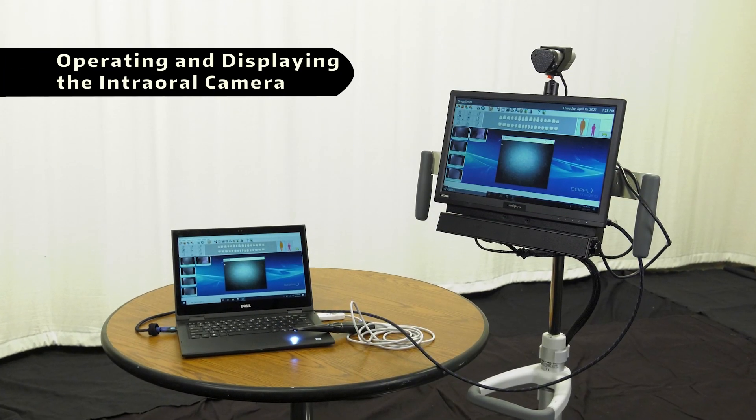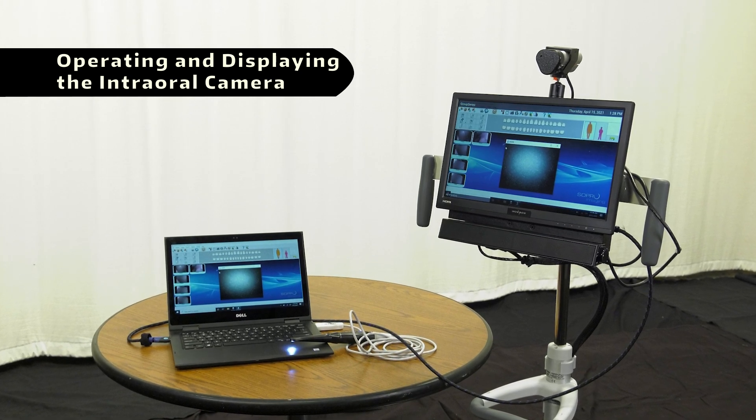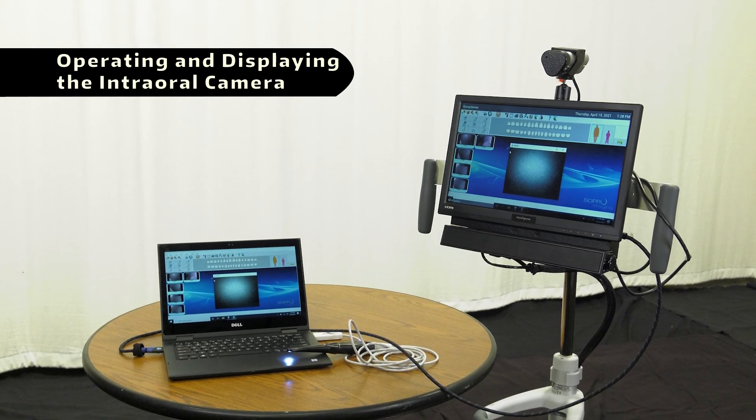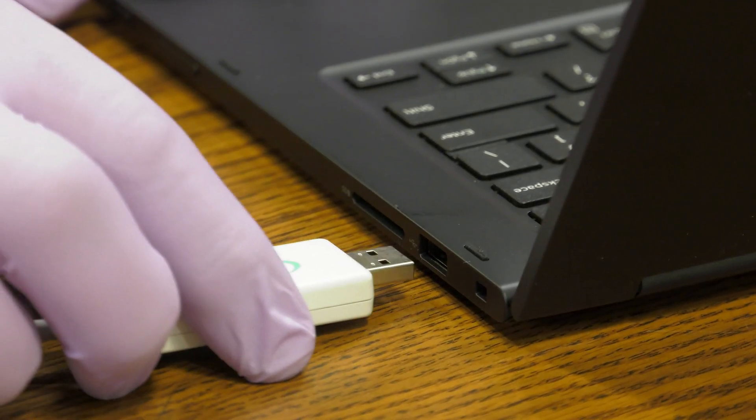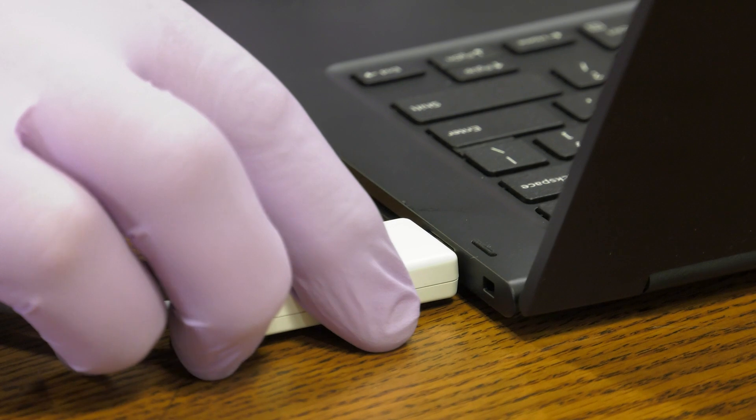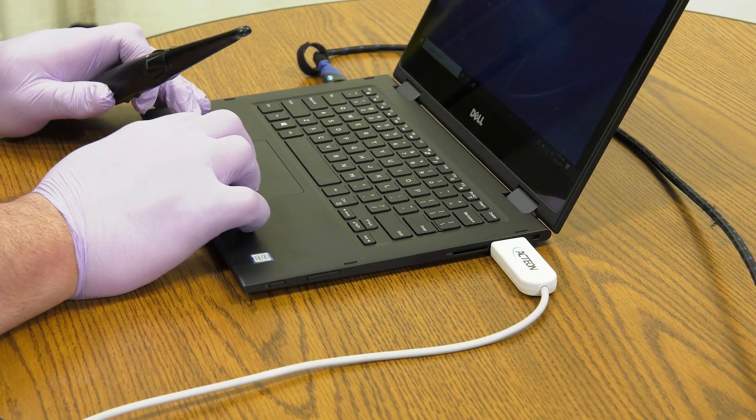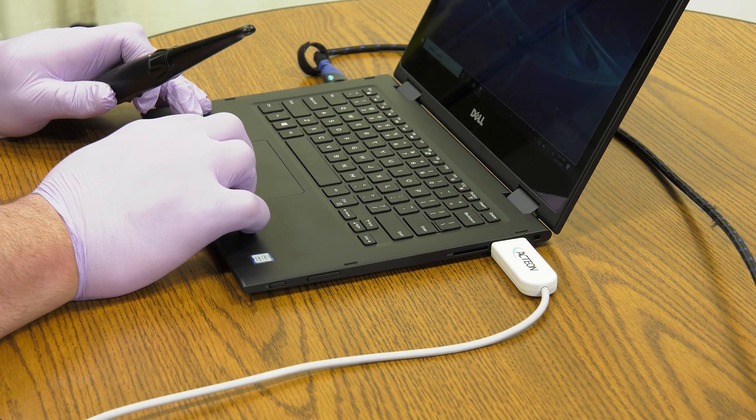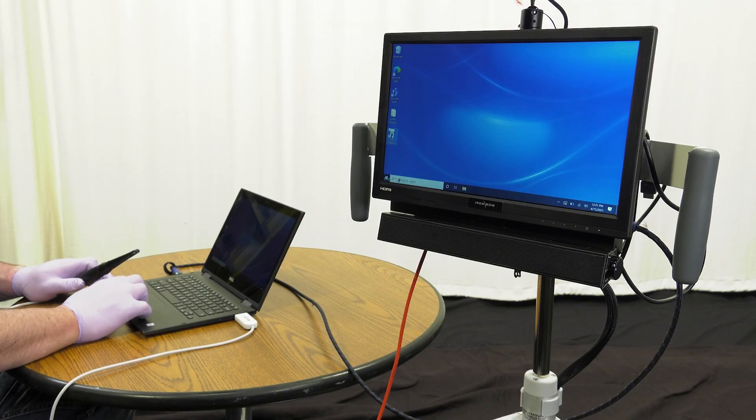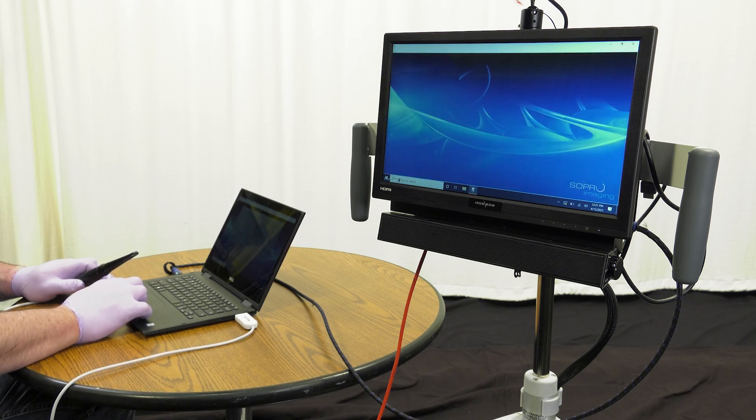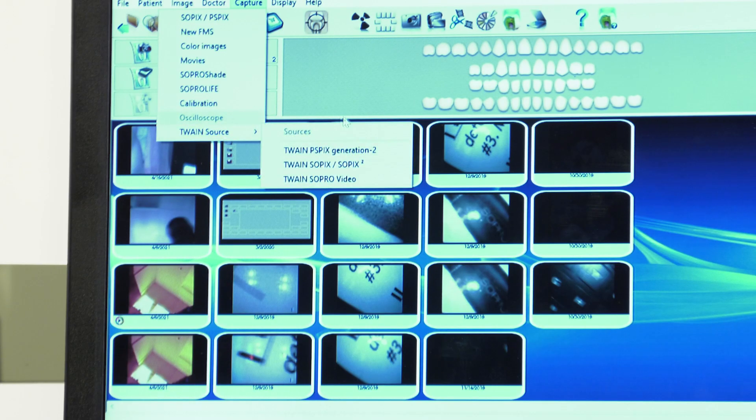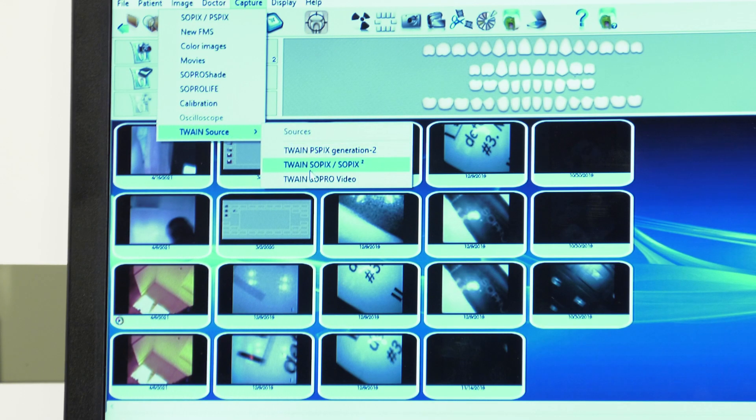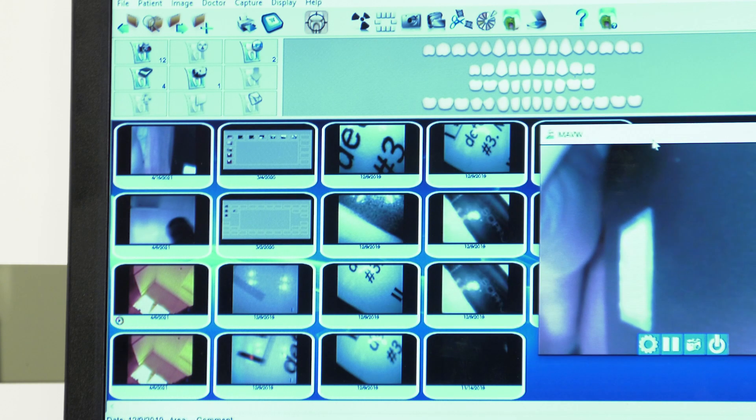The SoPro camera is an intraoral camera that can display and capture high-quality intraoral images for diagnoses and treatments. To display the contents of the intraoral camera, connect the wand to the laptop and launch the SoPro imaging software. When the software is fully running, it will automatically detect the camera and be ready for use. Once you are connected to a Zoom call from the cart, follow the steps to display the contents of the laptop. The on-screen content should then display the SoPro imaging software along with the live feed from the SoPro camera.